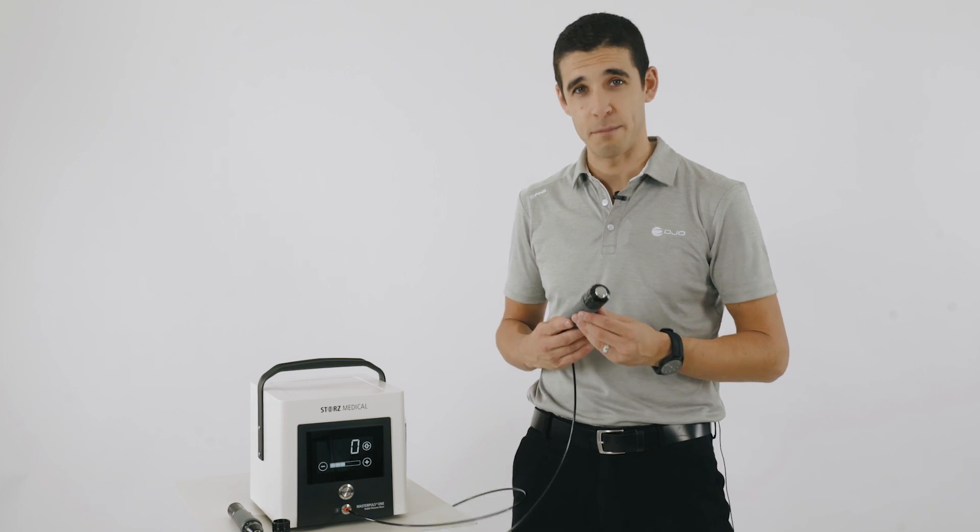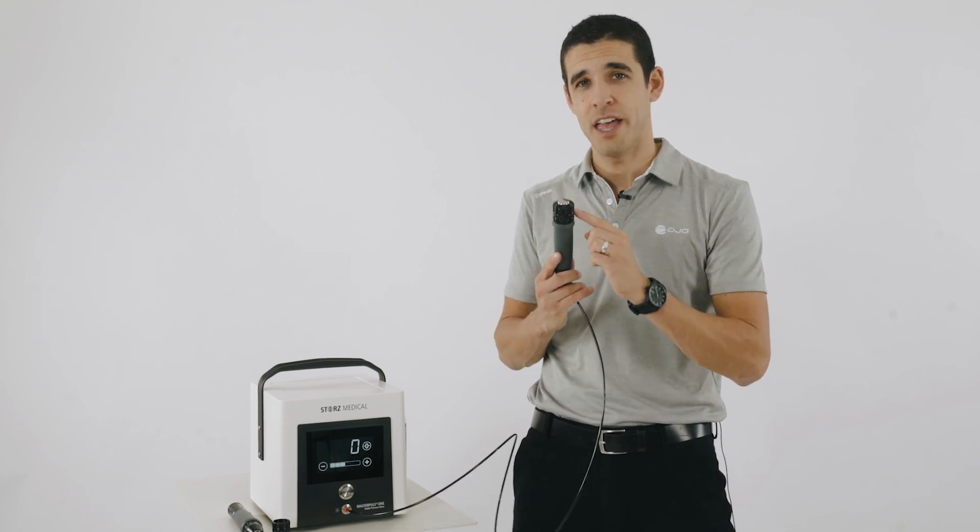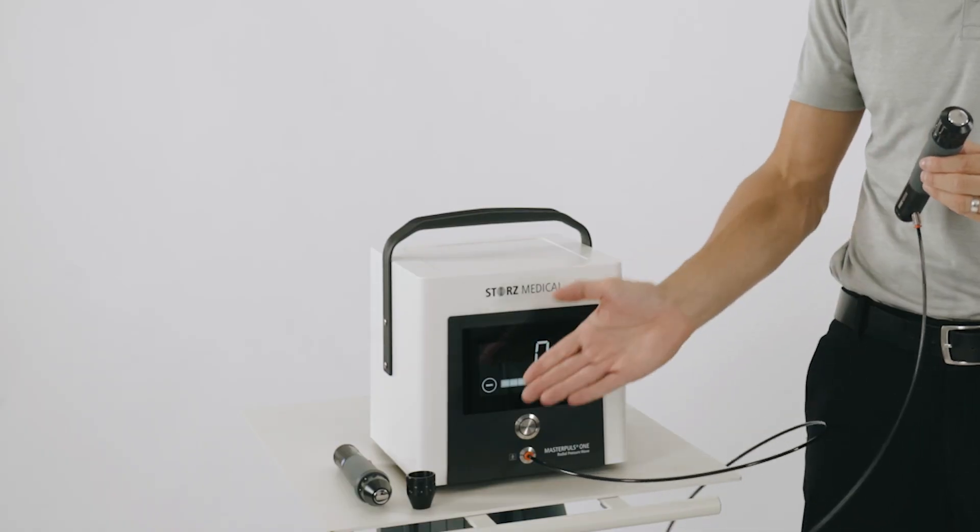The Master Pulse 1 comes standard with the D20S transmitters. Additional transmitters can be purchased.